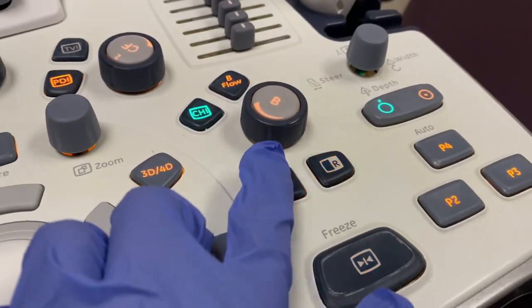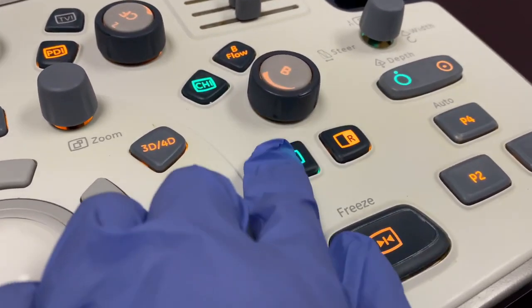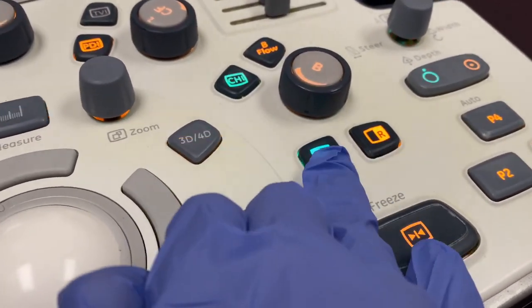We also use this left and right button. This is for the dual screen. Anything that's green, that means it's highlighted and it's in use. So I push left, and this line here shows me that this left photo is being currently used. Then when I click on the right, see how the line moves over? So left, and I'm going to click on the right.